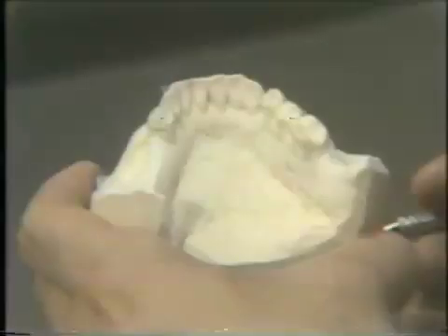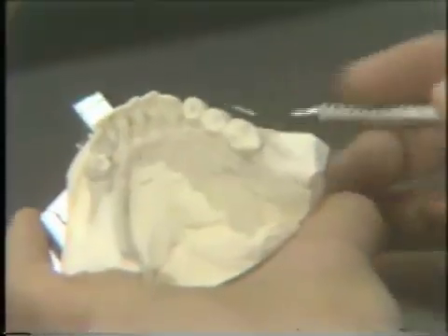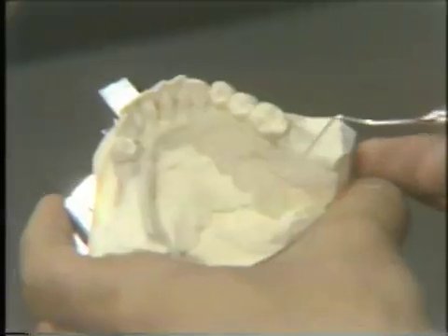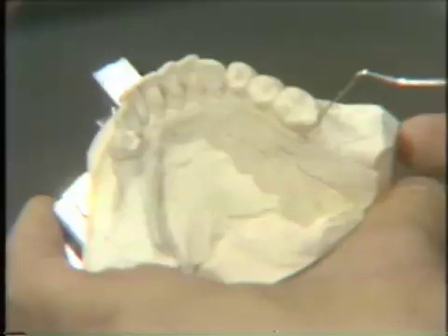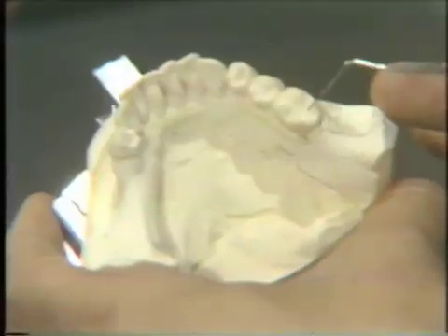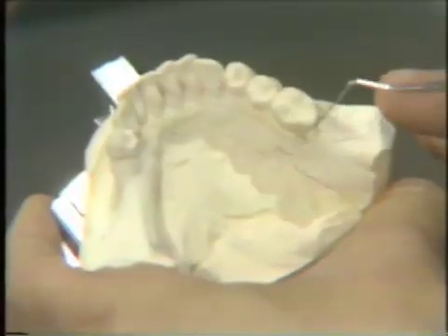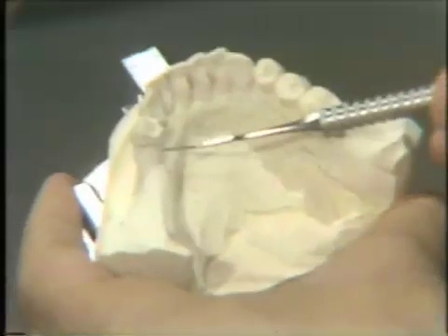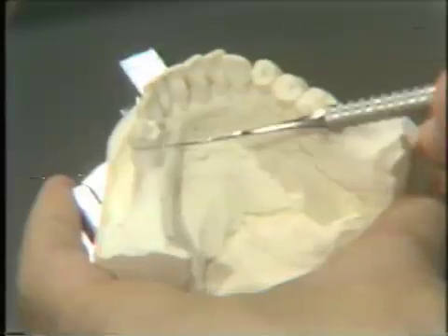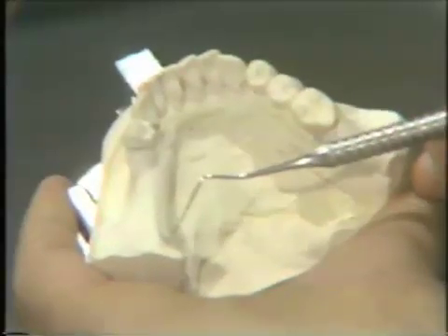This aspect should be performed by the dentist. In this situation, the class 2 removable partial denture situation — I term it class 2 because we will not be replacing the molar on this side. The occlusion in the maxillary arch is stabilized with the dentition on this side, so there is no need to make it a double free end saddle. When we have the edentulous situation in the unilateral situation, it's a class 2 design.